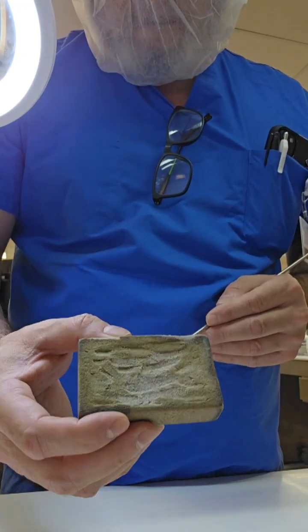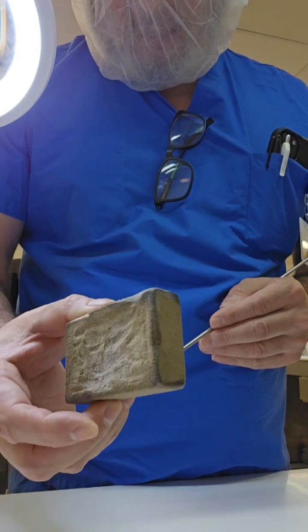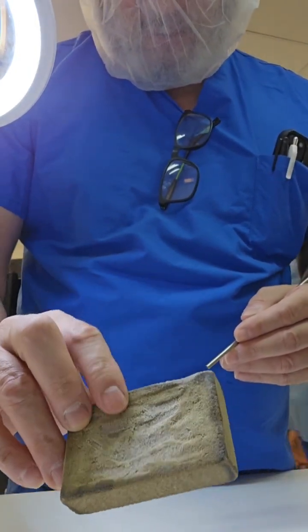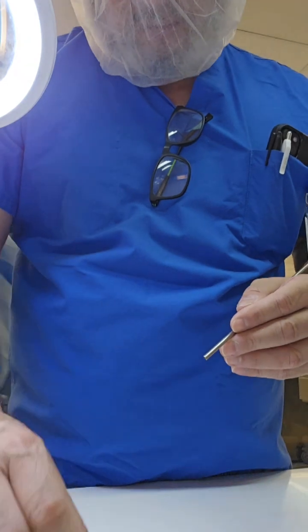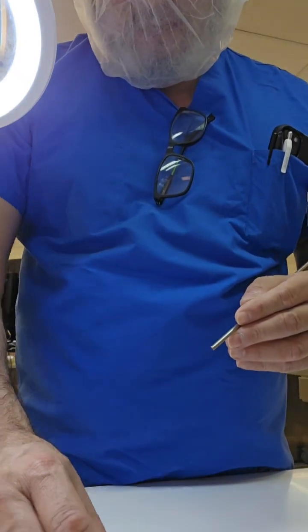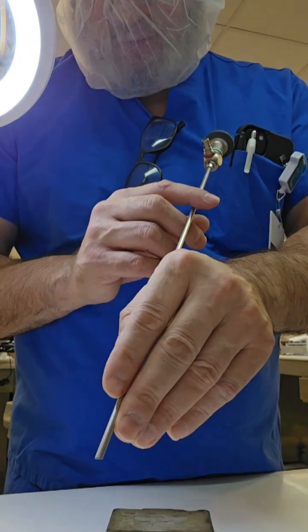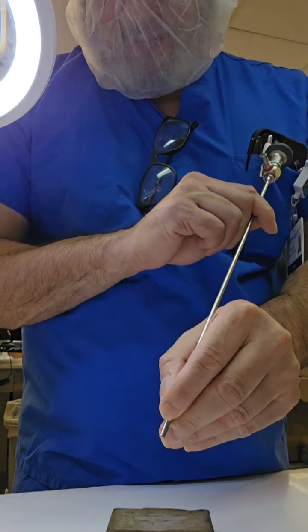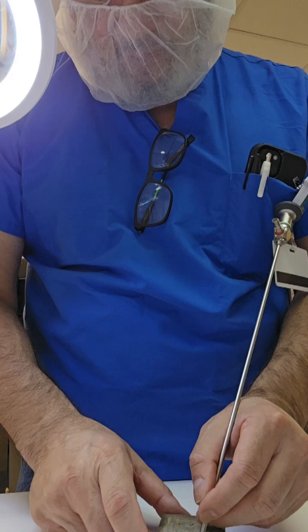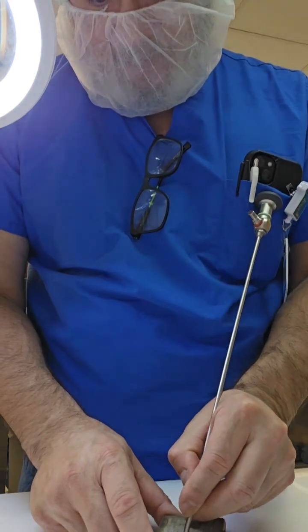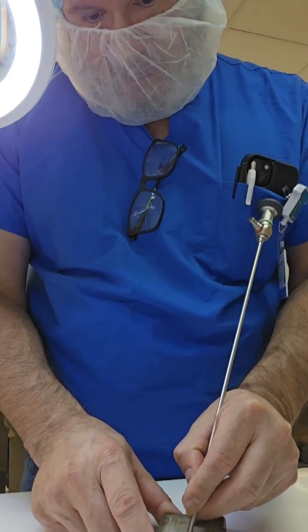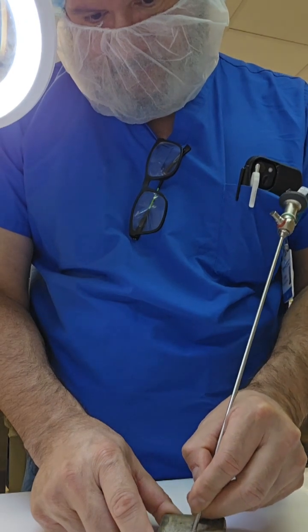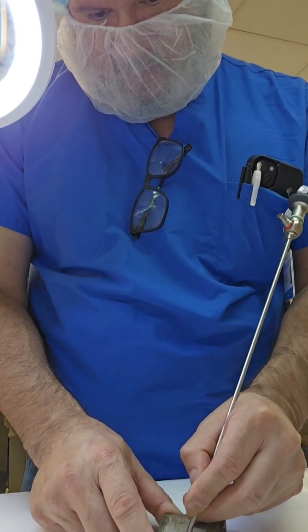We're going to use this medium grit eraser block, a polishing block here. I was taught this 15 years ago by a representative or vendor of this specific scope company. He actually sold these to us and had a couple at hand. I wound up finding some on the market. This specific one I have here is 15 years old. I've had this thing for 15 years.